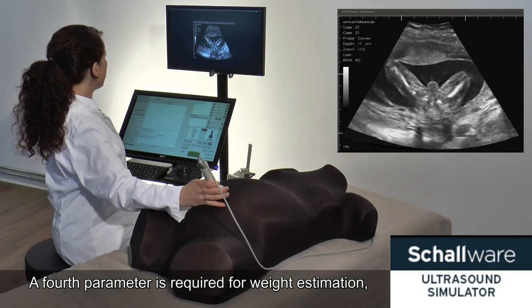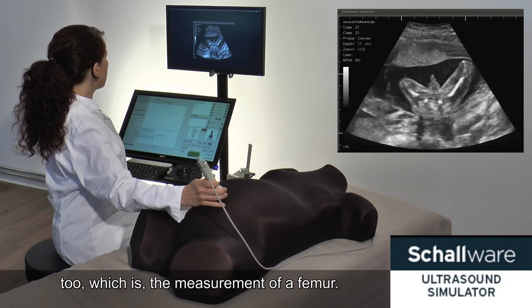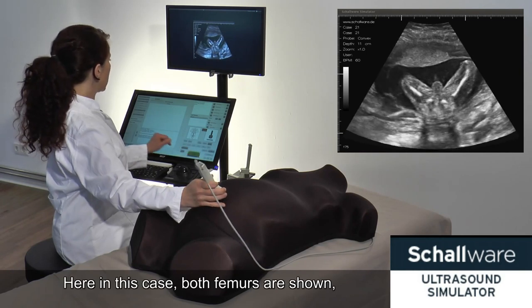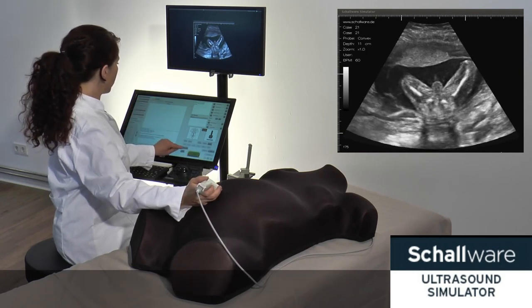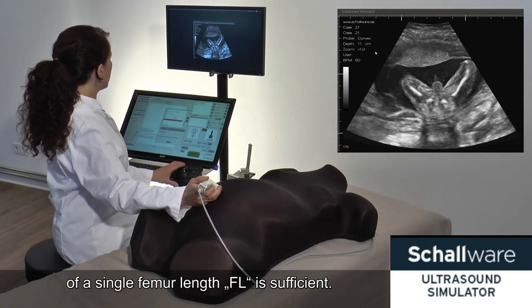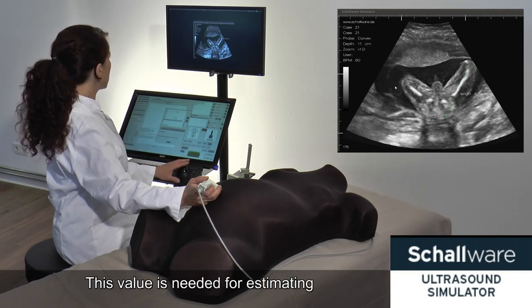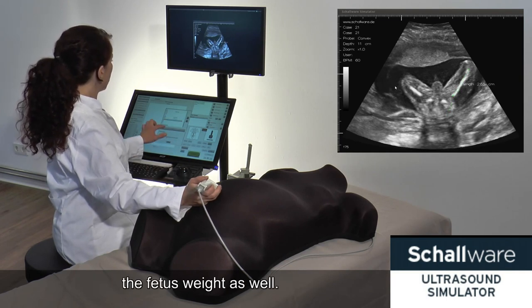A fourth parameter is required for weight estimation as well, which is the measurement of a femur. Here in this case, both femurs are shown; however, the measurement of a single femur length, FL, is sufficient. This value is needed for estimating the fetal weight as well.